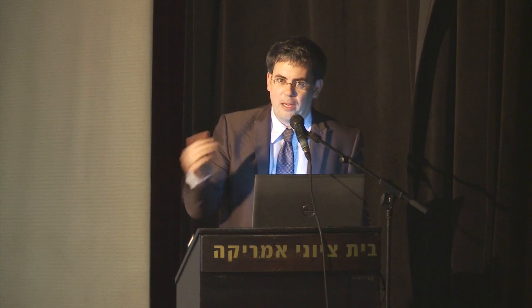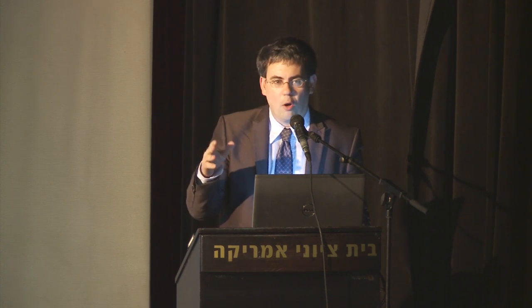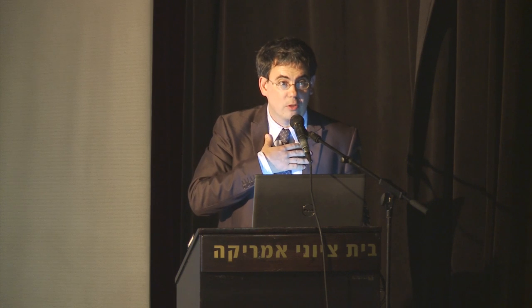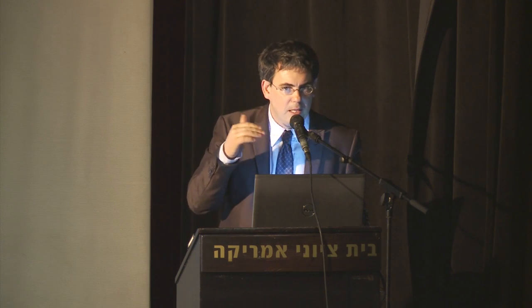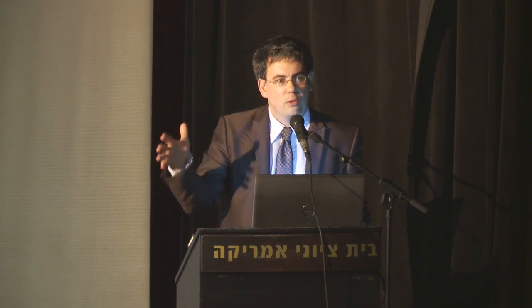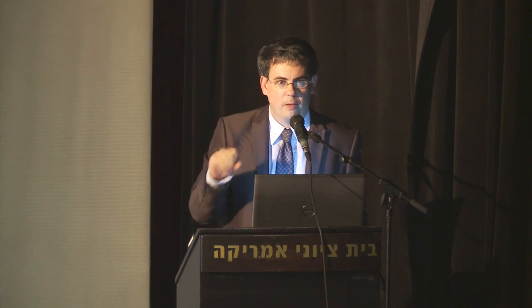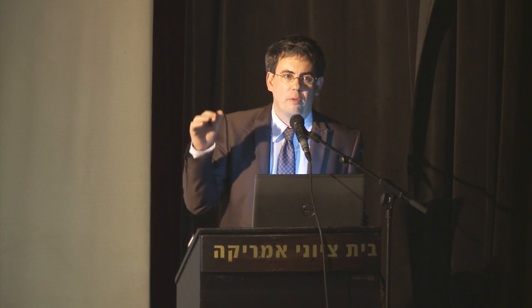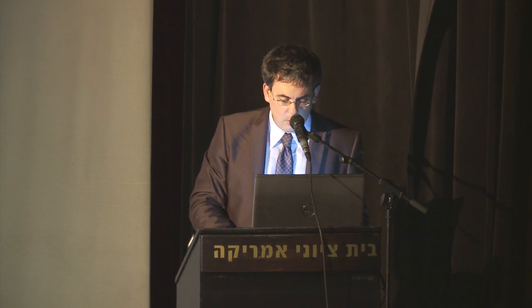When we prepared the lecture, because I will show you some cases from our everyday workstation, we found out that all our cases were done in the low-dose mode, although I was expecting them to be in high-definition mode. So this was a very funny recognition during preparation — and you will see that you can see all the clear, very fine details even with reduced radiation exposure for the patients. So now let's start.